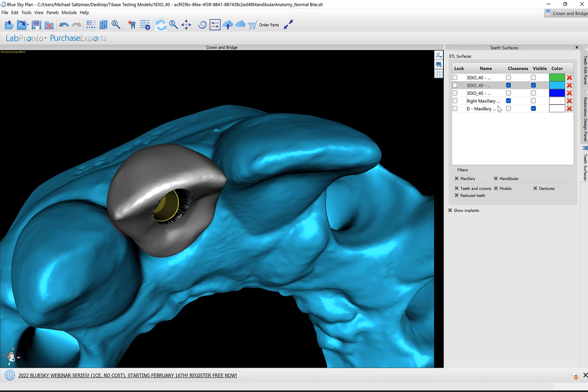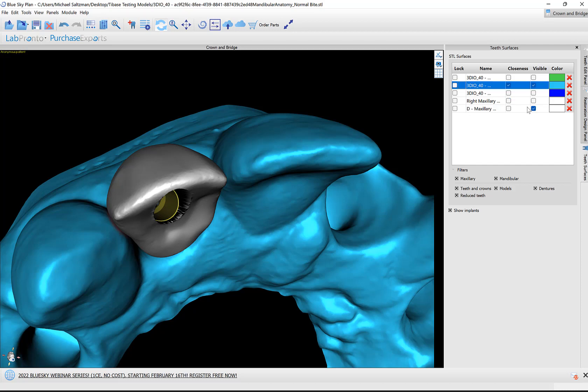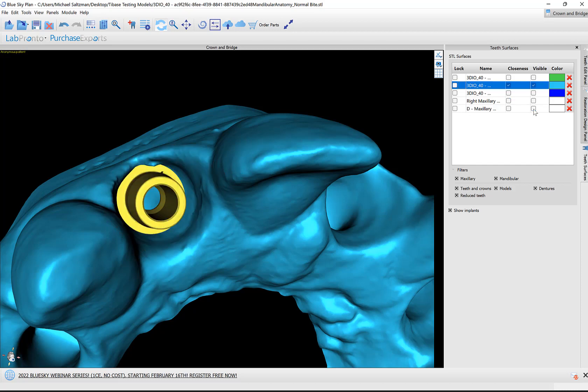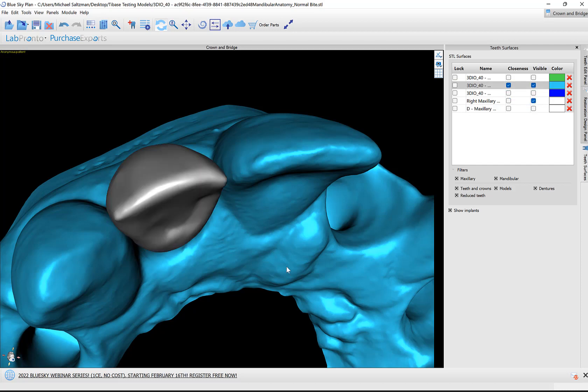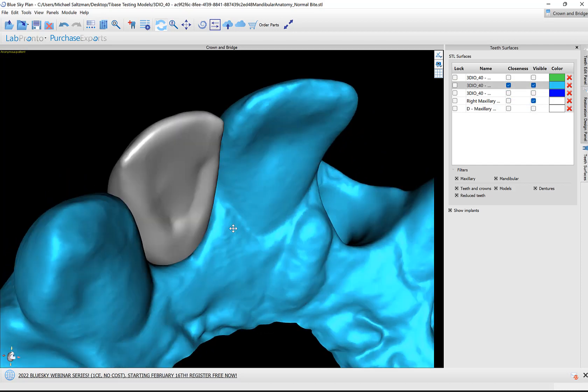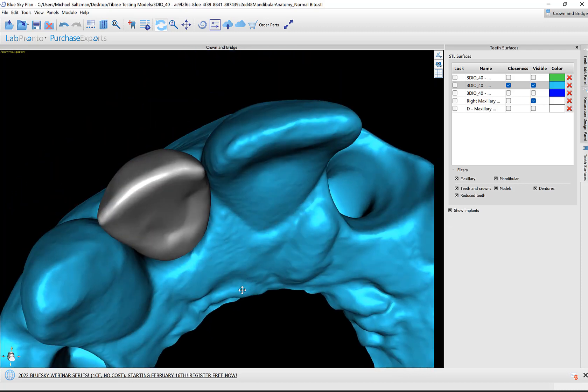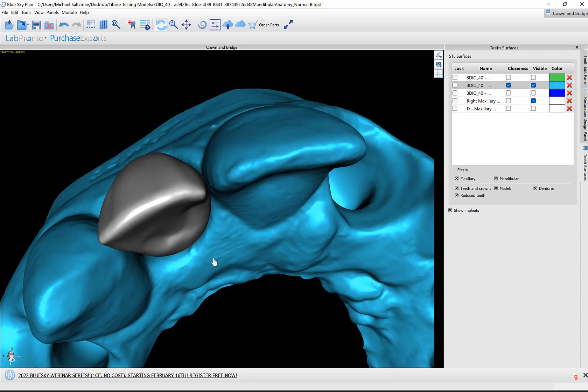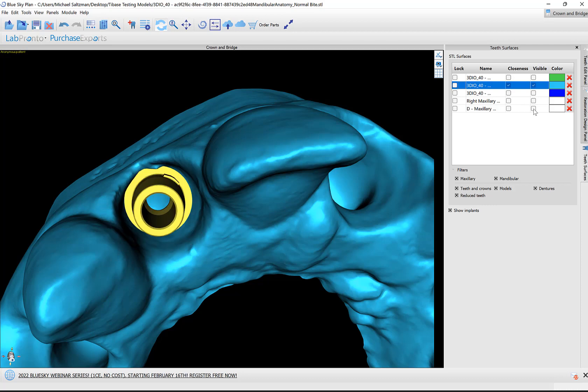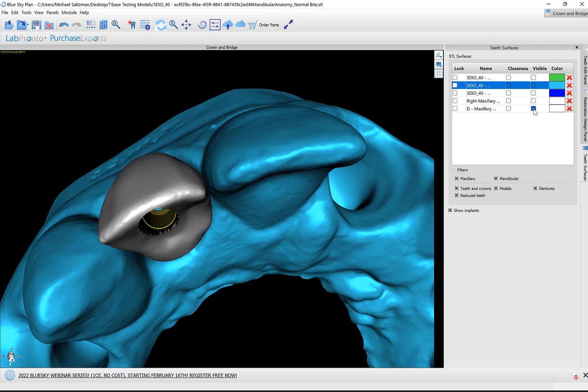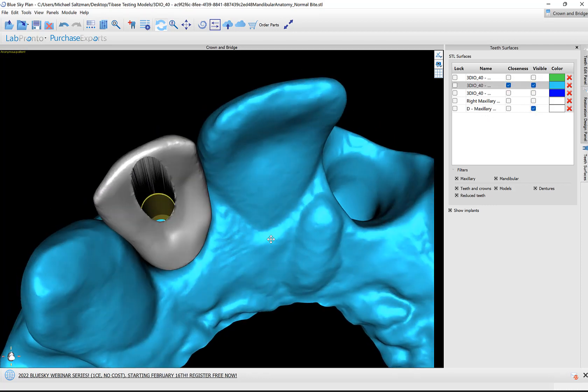First of all, in the surfaces panel we can now see that we have an extra new surface. This is our designed crown. It starts with a D indicating that it's designed. We have our original tooth that we placed as well. So if you wanted to redo the process or modify the process, it's very easy to do and you can work off of the tooth that was positioned and created. And then we have our design surface, which is our new surface.